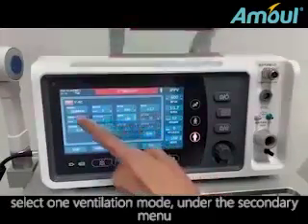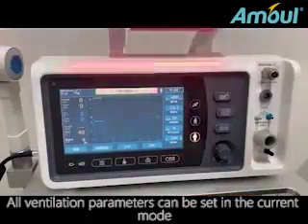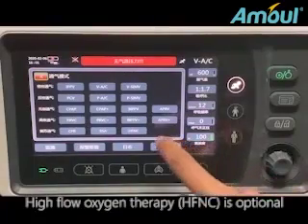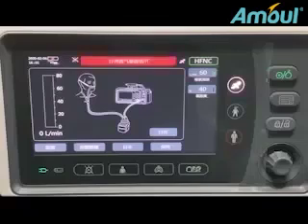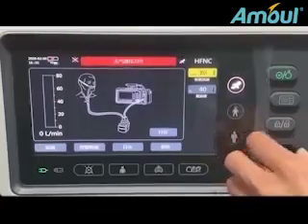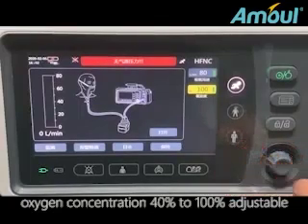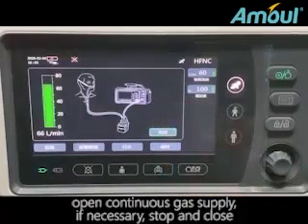Select one ventilation mode under the secondary menu. All ventilation parameters can be set in the current mode. High flow oxygen therapy, HFNC, is optional. Oxygen flow rate 0 to 80 liters per minute adjustable. Oxygen concentration 40% to 100% adjustable. Open for continuous gas supply. If necessary, stop and close.